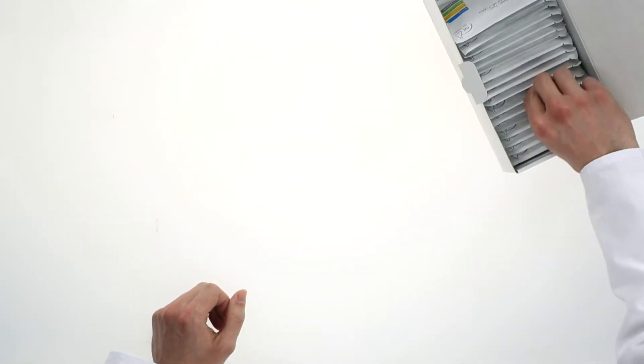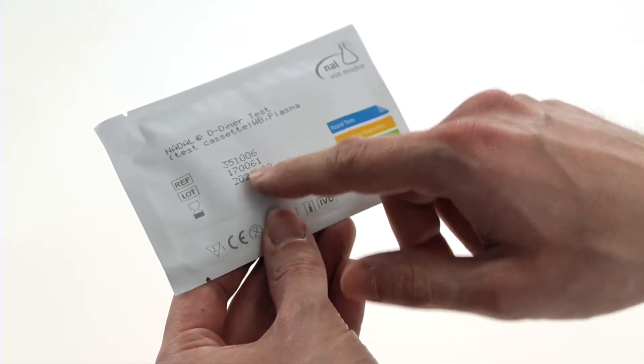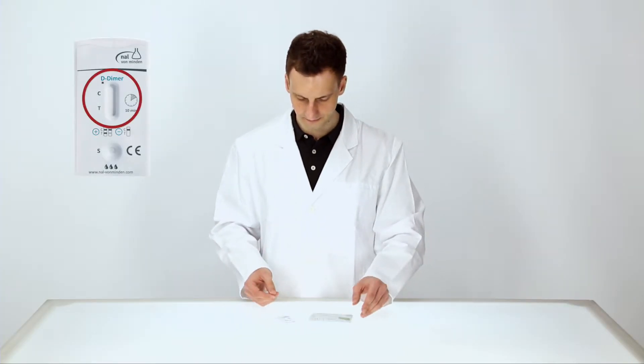Always start by reading the instructions carefully. Do not use tests with damaged pouches or beyond the stated expiry date. Use the test immediately after removing it from its pouch and do not touch the result field.